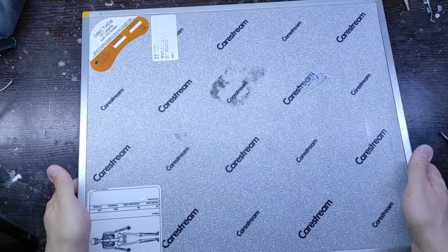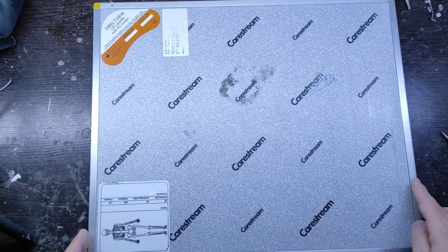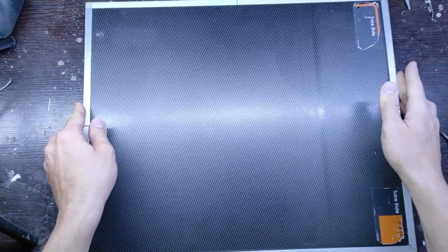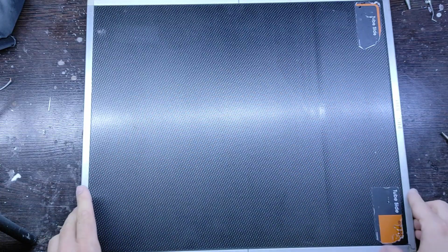This is a CR system cassette that can be used to easily view the radiography image on the computer using the CR system. This black area is where the patient's body parts are placed for the image to appear on the CR system.